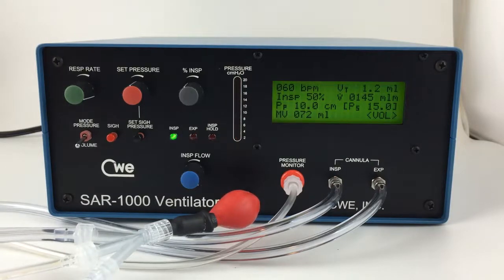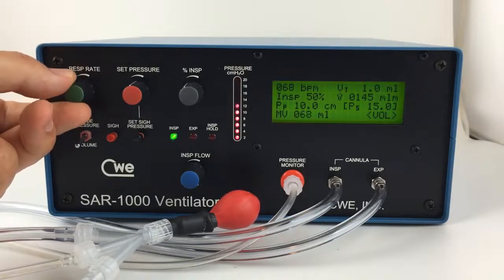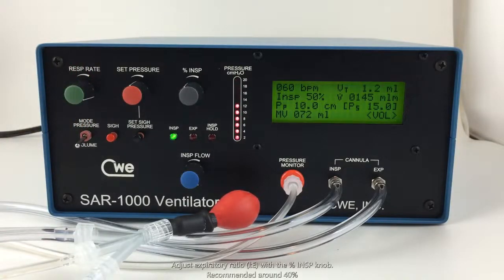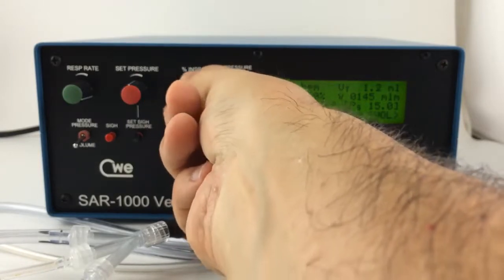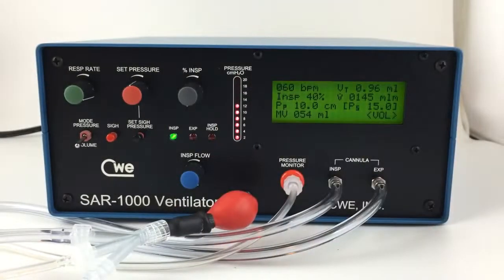To set up the SAR for volume mode, begin by adjusting the respiration rate. Next, you'll want to adjust the percent of inspiration. Now adjust the inspiratory flow knob.